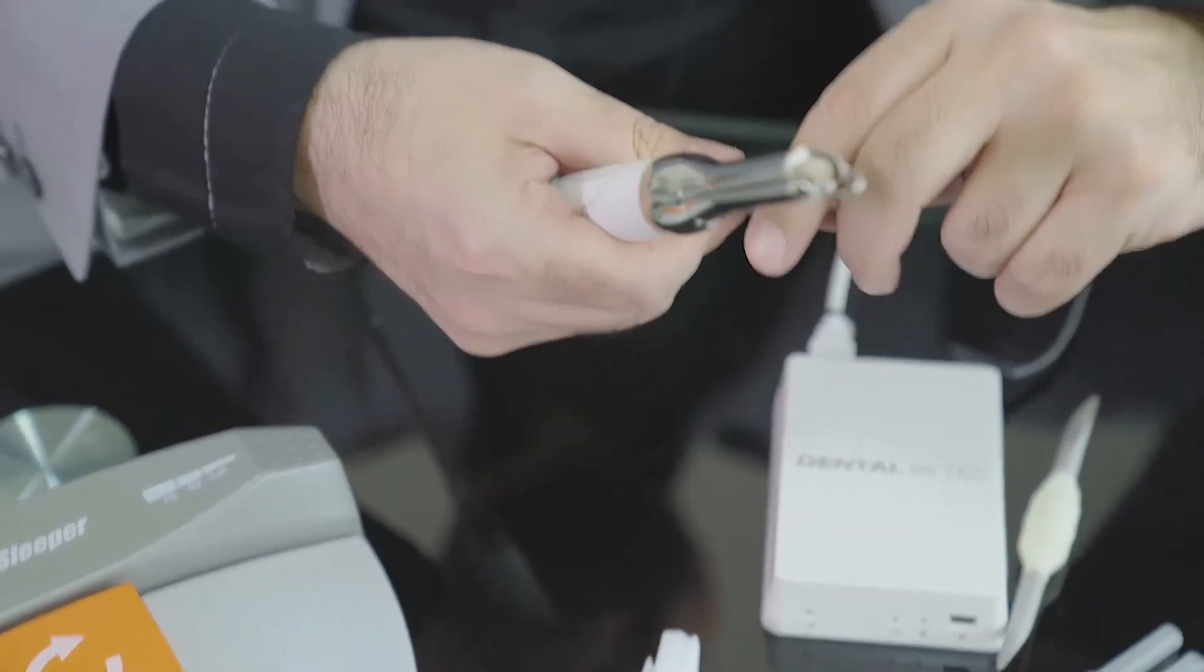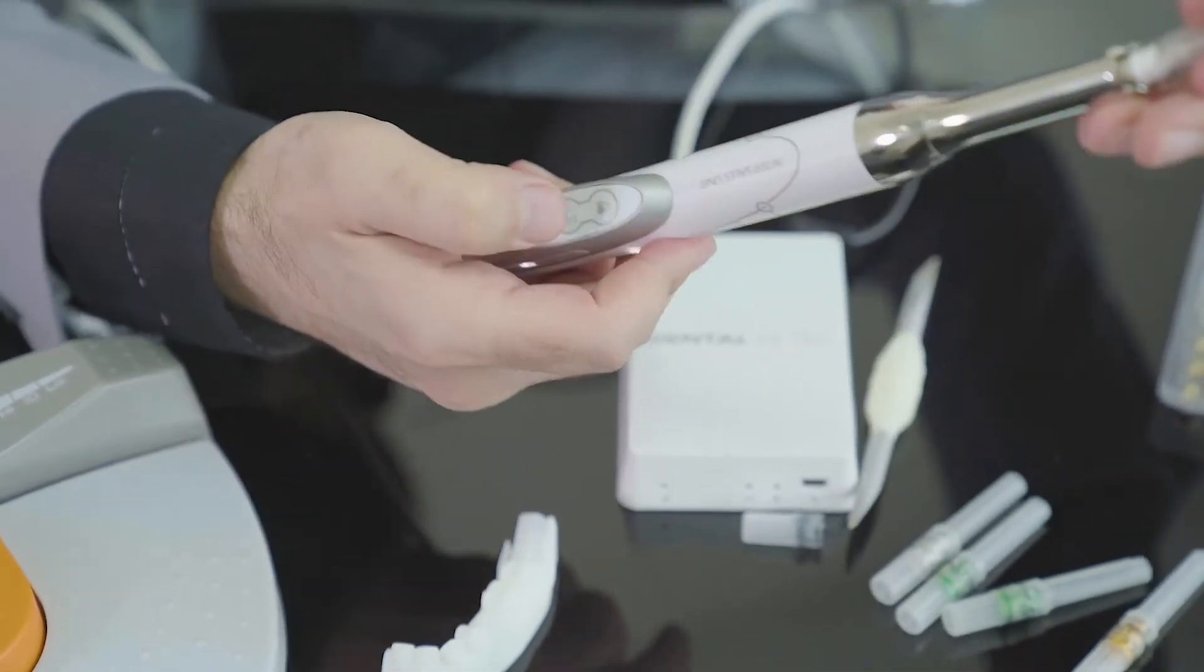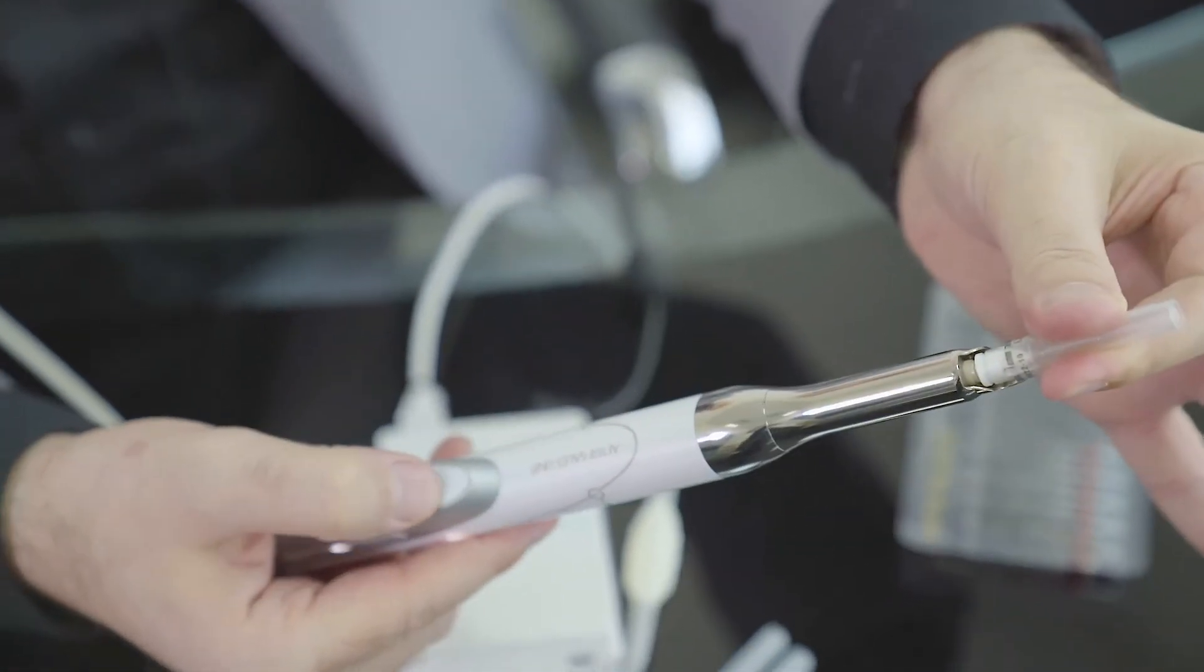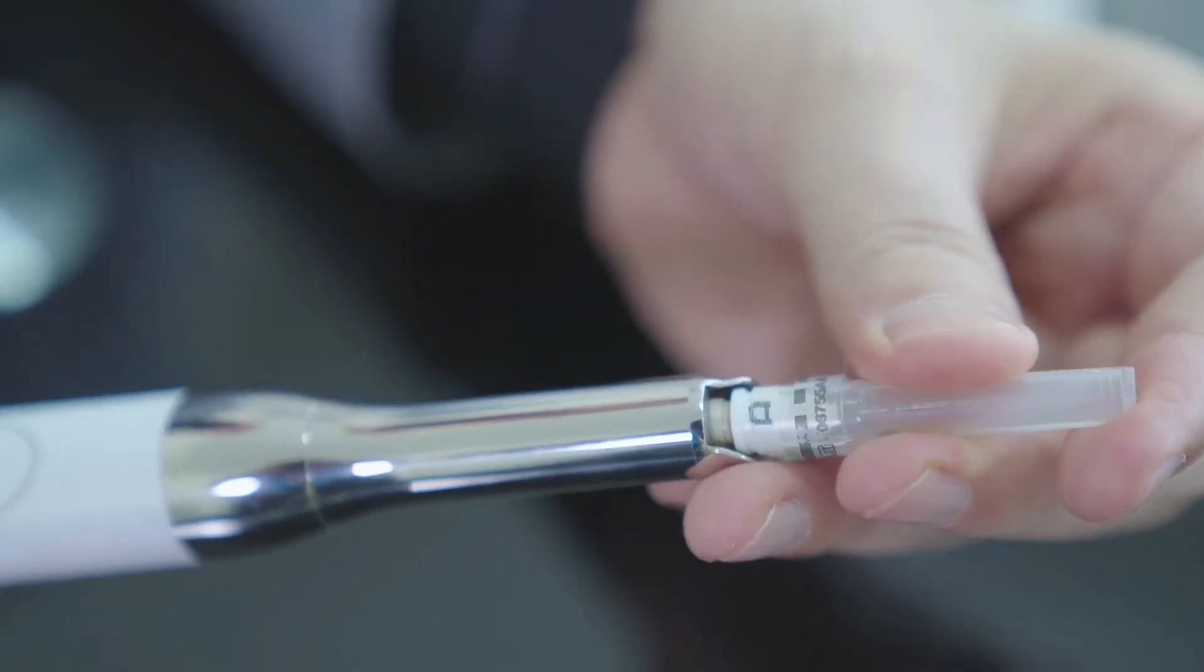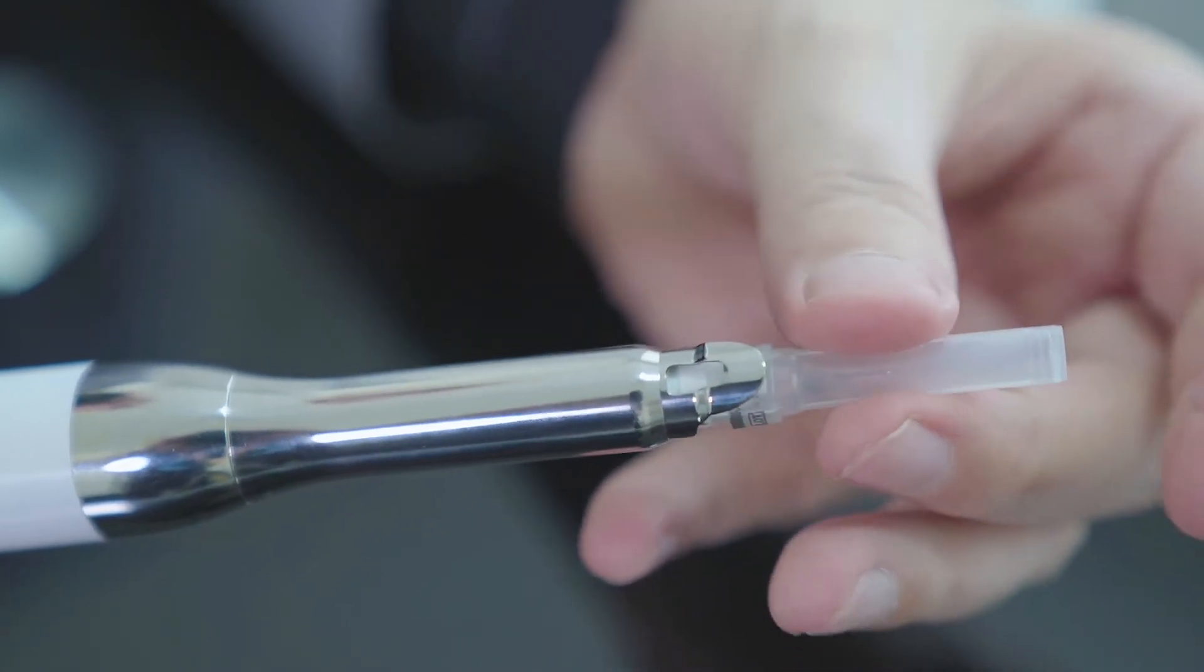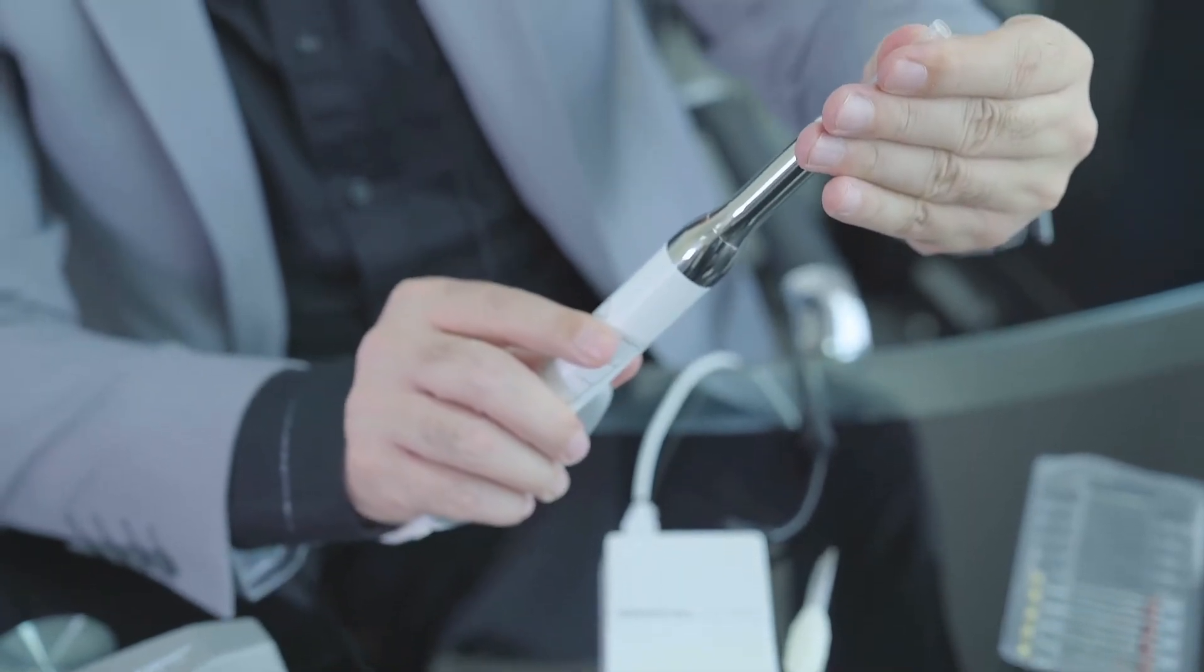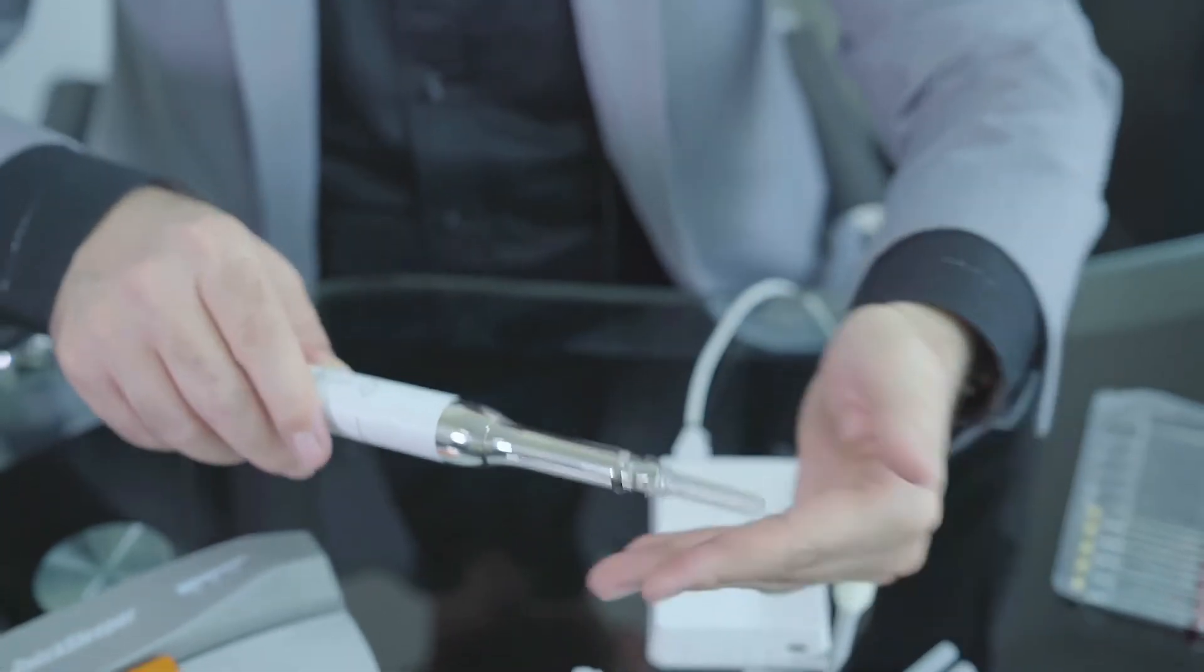Let's start fixing the needle. I put the needle in front of the handpiece and it will be screwed electronically, not manually. So I press, continuous press, on the lock pad on this display, and fix the needle and handpiece in front of each other, like this. I place the D in the direction of the window to guarantee the bevel direction, which is on the opposite side of the D.